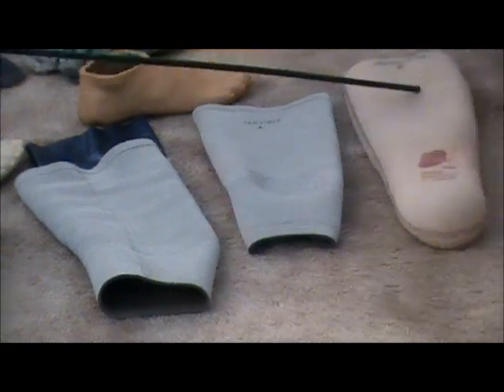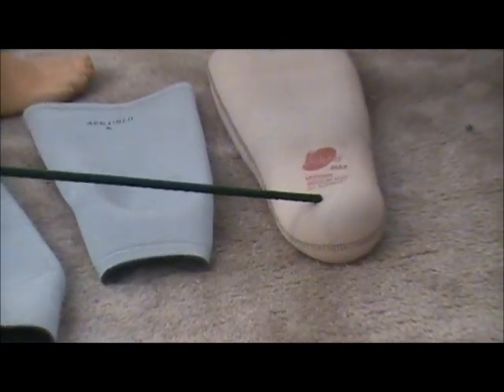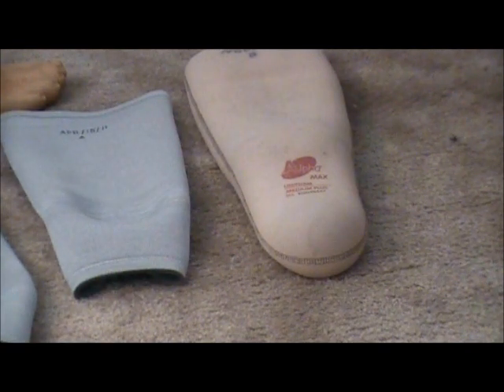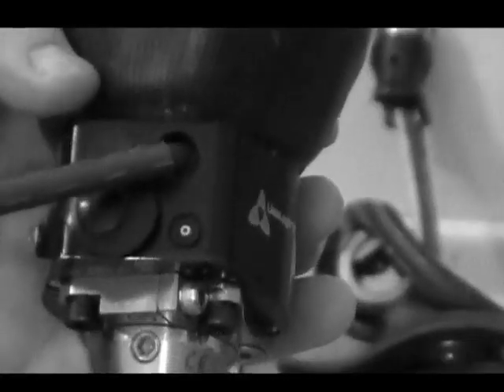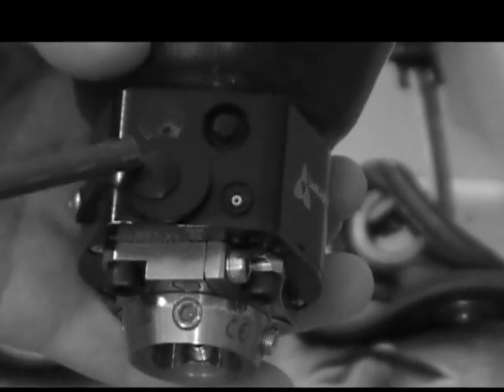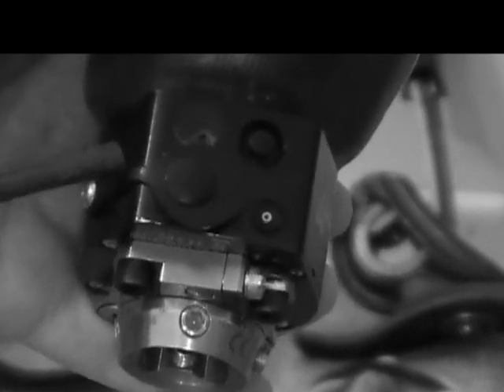This is an alpha liner. This part fits directly against the residual limb or stump, and this part goes directly inside of the socket. Inside the socket near the bottom you'll notice there's a small hole — that's so the LimbLogic pump can work. It will pull the air out. The LimbLogic pump attaches to the bottom. The control button turns it on, this is where the air comes out. It pumps the air out, and this is a cap that covers the charging hole where you plug this in to charge it up. There's actually a battery in here — this is battery operated.